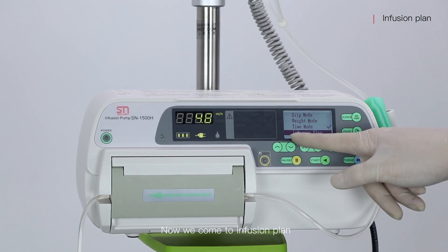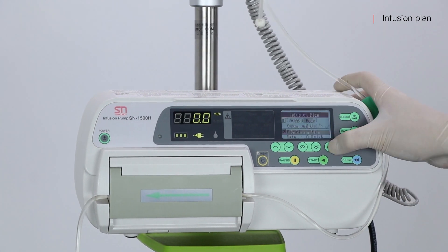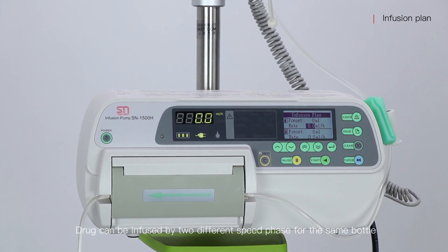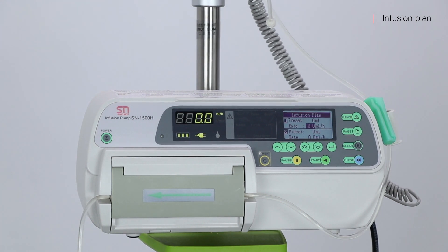Now we come to Infusion Plan. A drug can be infused at two different speed phases for the same bottle.